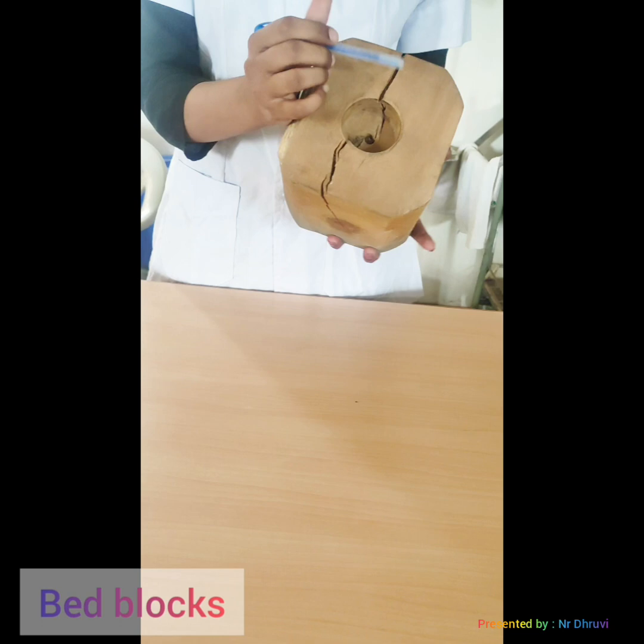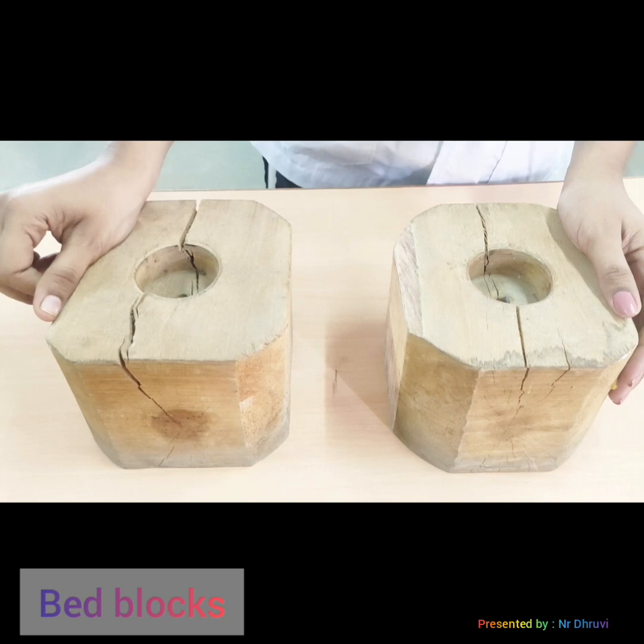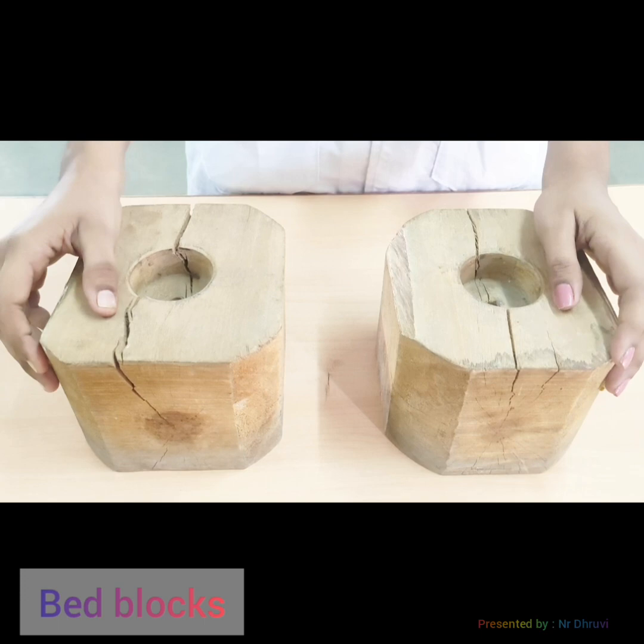The next device is the bed block. Bed blocks are made up of wood or metal and are used to raise the foot end or head end of the bed. The hollow of the bed block fits into the foot of the bed.